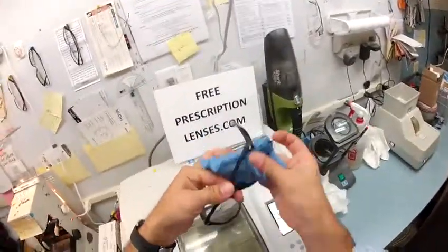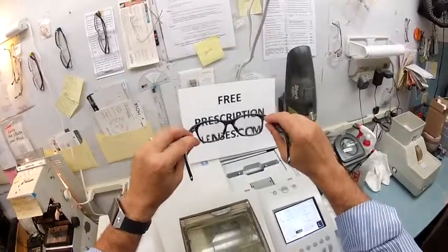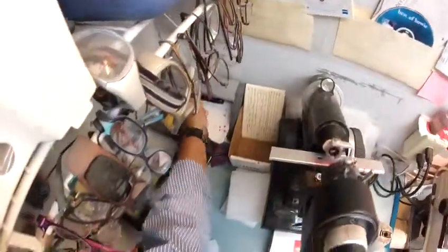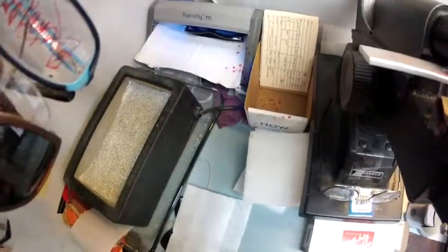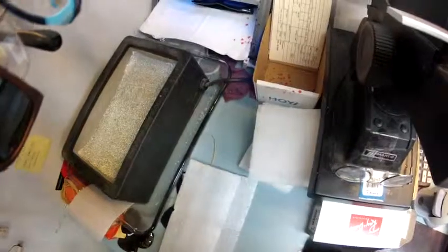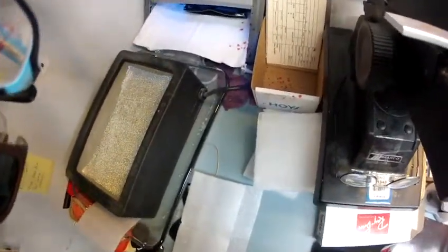This is with your lenses clear — no prescription in the top and the plus 1.75 reading in the bottom. Hopefully the optical illusion lets you see the letters being magnified as I move in front. These are your clear lenses. I'm going to go ahead and turn them dark by exposing them to a strong burst of UV light. All transition lenses will get dark on day one — remember this, Bob. They're going to continue to darken every day for the first two weeks until they get to their final setting, providing they're exposed to the sun every day for the first two weeks. Once they reach their final setting, they will work for years with maximum performance.